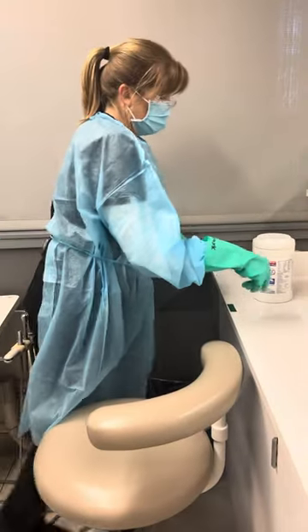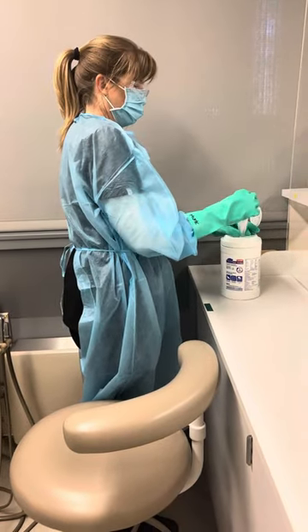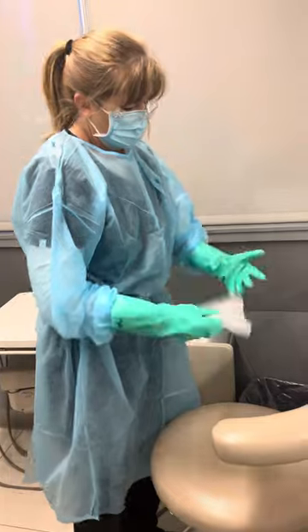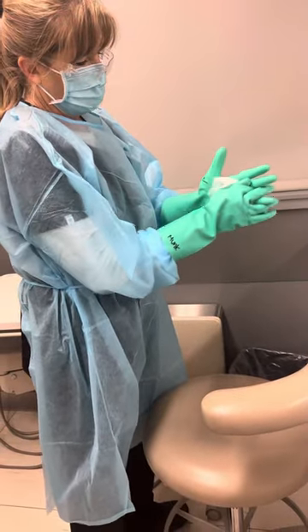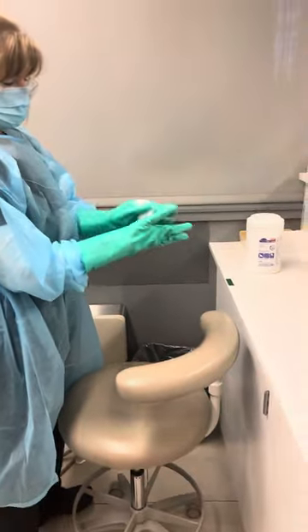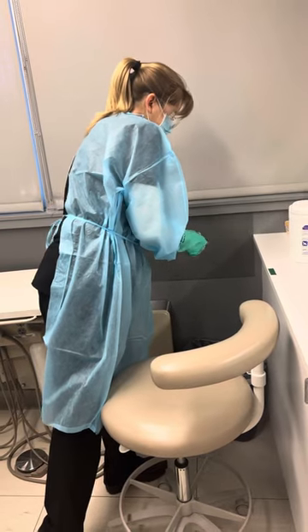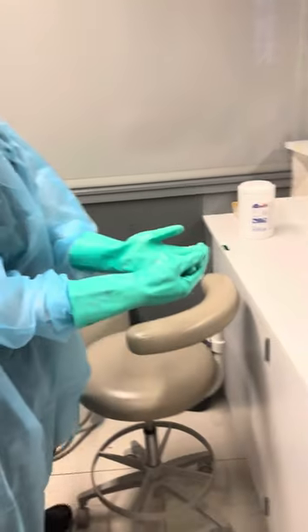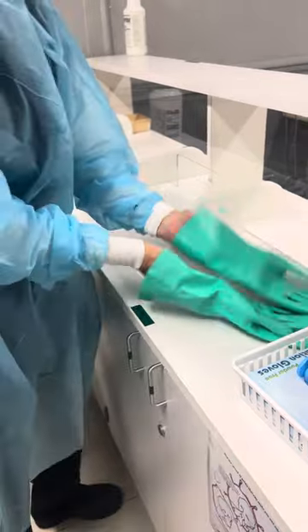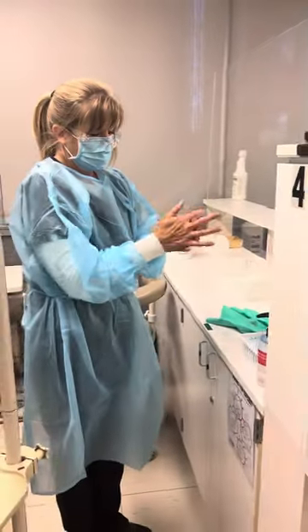She's going to wipe one more time to make sure those gloves are disinfected — this is one wipe she's using because these gloves are going to stay with her and be considered clean. She makes sure she gets a lot of chemical on there. If you don't have gloves underneath, you have to be very careful removing the utility gloves — shimmy out of them without touching the chemical. She pulls off halfway, scoots out of them, and drops them on the counter to sit for their time. Then hand hygiene.